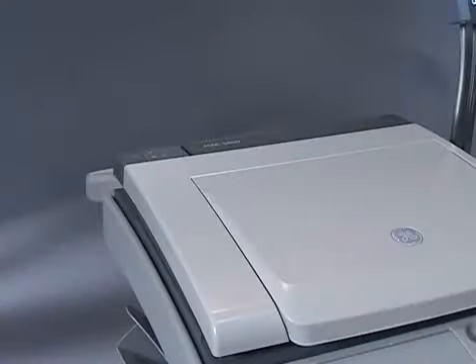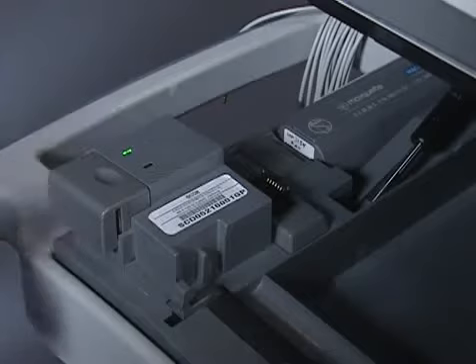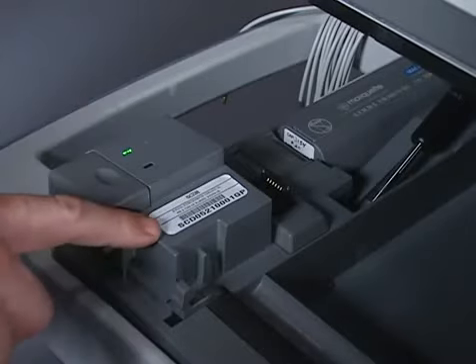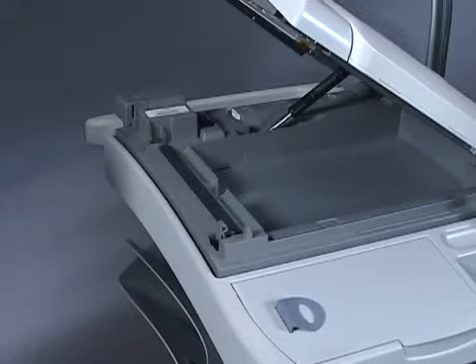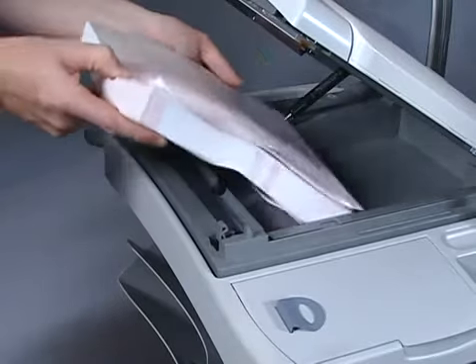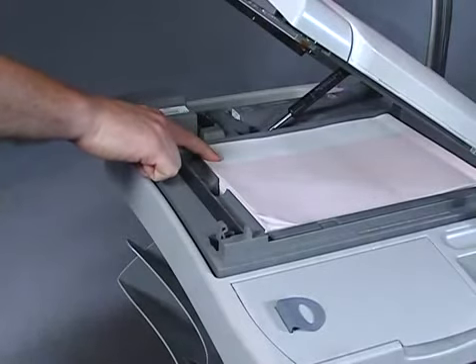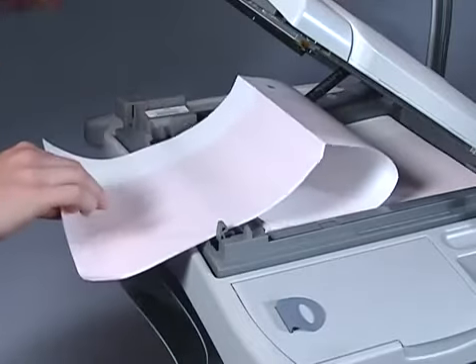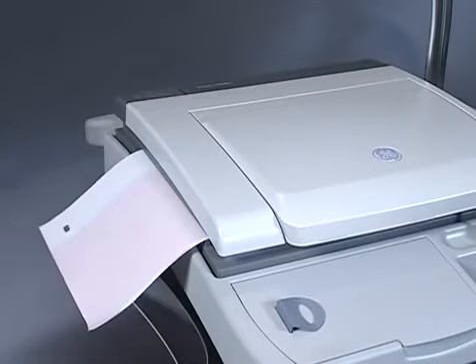To open the unit so you can change the paper, place your finger on the internal access button and press down firmly. When the unit is open, you can also view the serial number and access the battery. To insert paper into the paper tray, simply set the pad in the empty paper tray, making sure the Q hole is in the upper left corner of the tray, which is the corner closest to the internal access button. Pull the top sheet partially out and hold it in place, then gently close the cover until it latches. The paper will advance when you acquire an ECG.